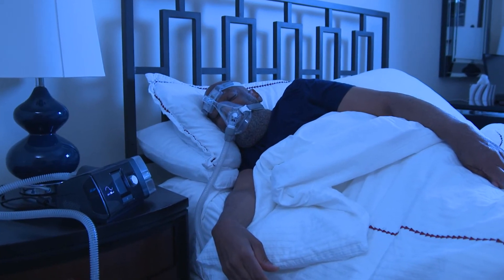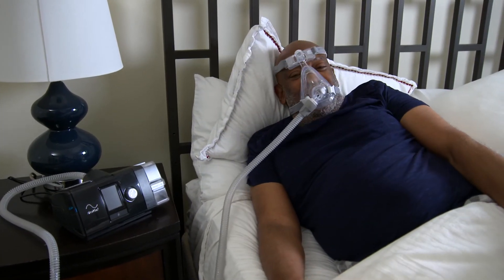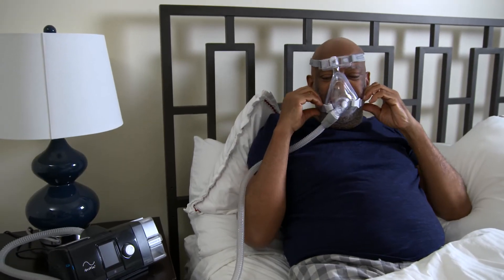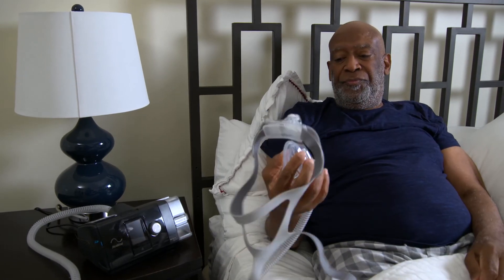The PAP airflow and mask will work with and adjust to your breathing. And before long, you just might find that you wake up regularly in the morning feeling more rested and with your PAP mask on. There is no right or wrong timeframe to this process — the answer depends on how confident you are as you progress through each step. As long as you continue to gradually become more comfortable with the process and the equipment, you are making progress towards better health.